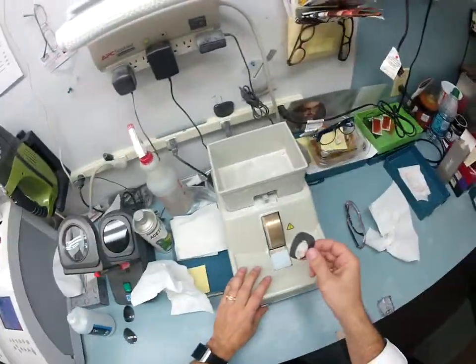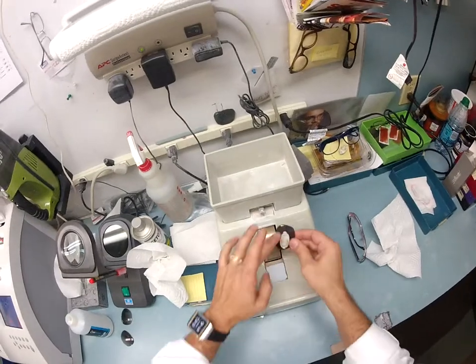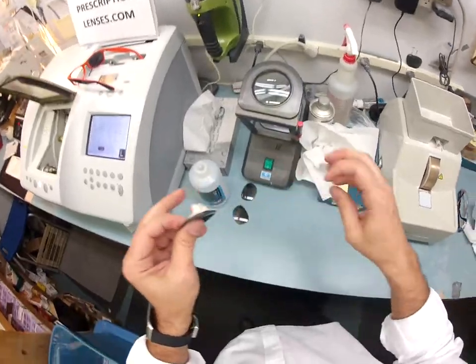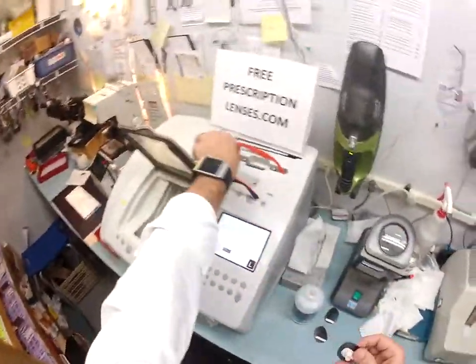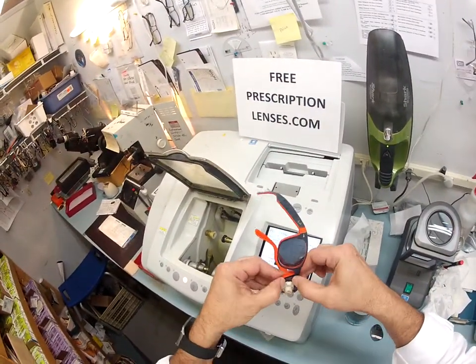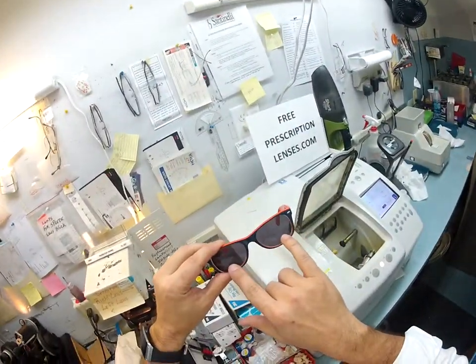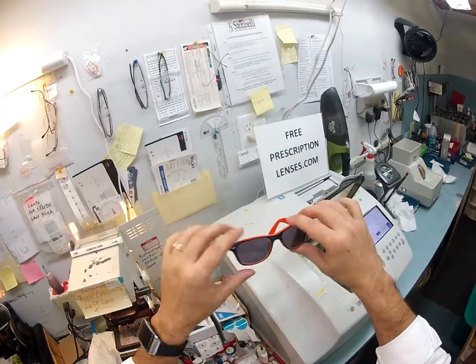Let me dry this off so I don't drop your lens. It's 8:40 — plenty of time. I put the safety bevel onto your lens, use my thumbnail to scrape away all the little optical sawdust. I'm going to tuck this in at the outside corner and using my thumbs press down at the edges — perfect. Because you have two pairs of glasses — the blue rubber pair and now the blue-orange pair — you can pop the lenses out of one and put them in the other. So essentially you have two pairs of clear lenses or two pairs of sunglasses.